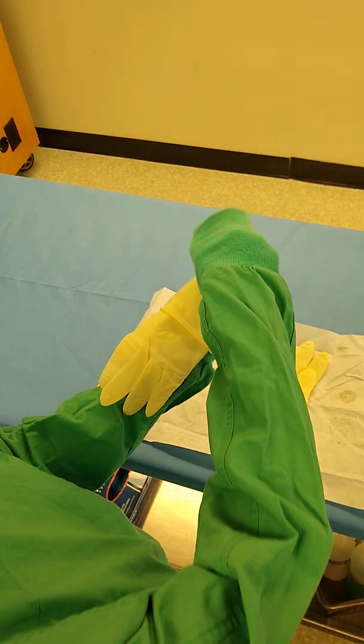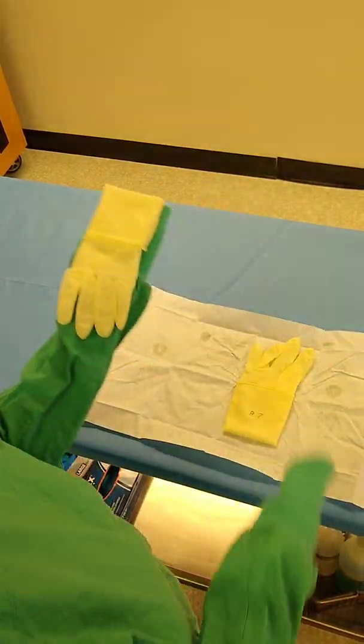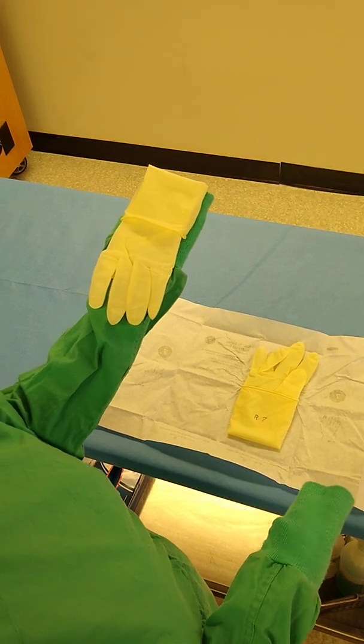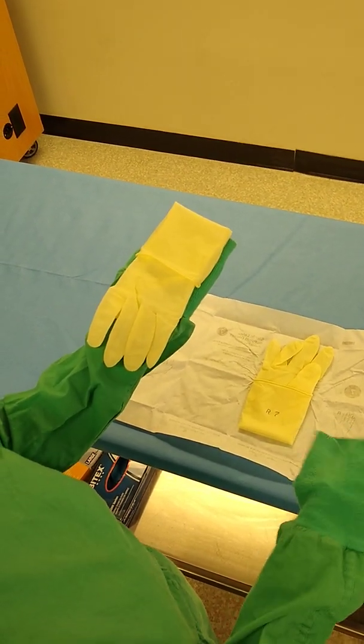The thumb of the glove goes to the thumb of my hand, and the fingers are going to point towards me. So if you remember that way to line up your gloves, you will always be able to put them on the correct hand the right way.